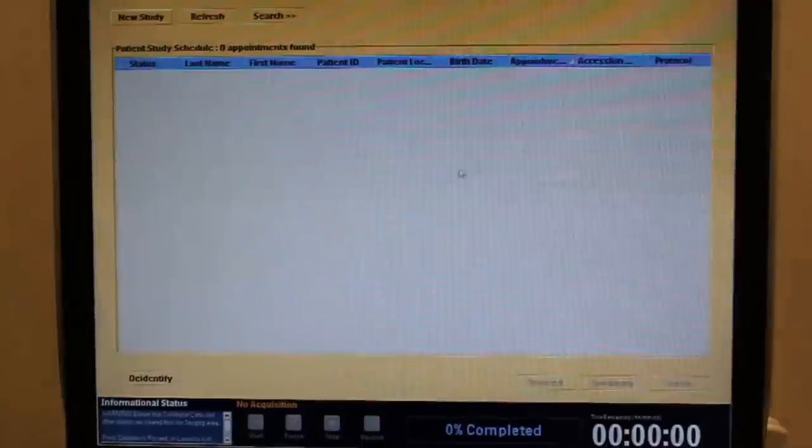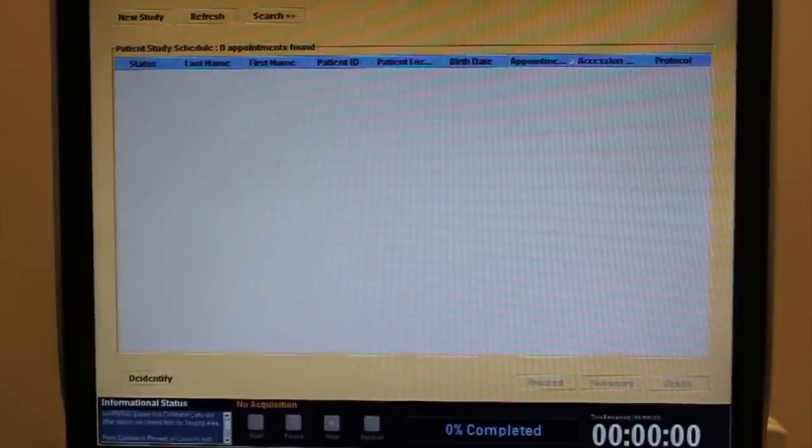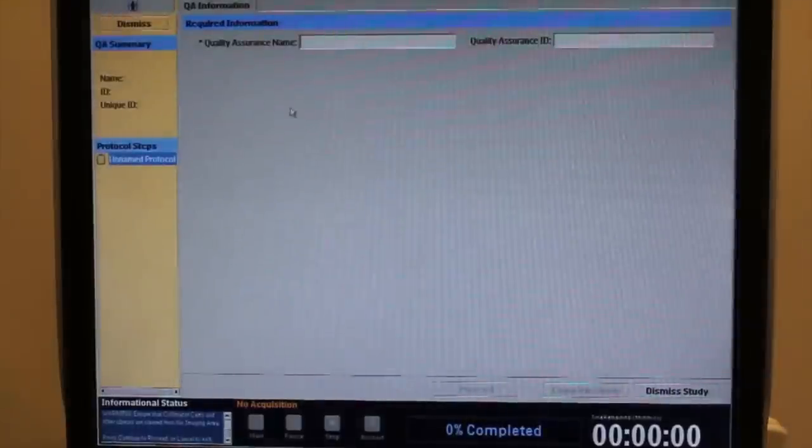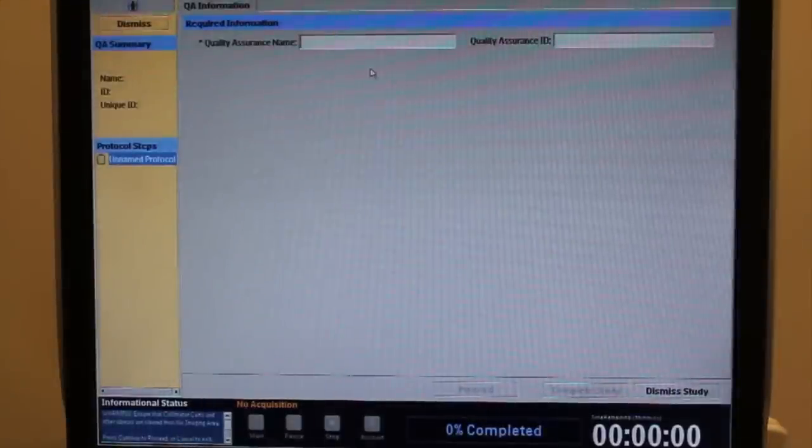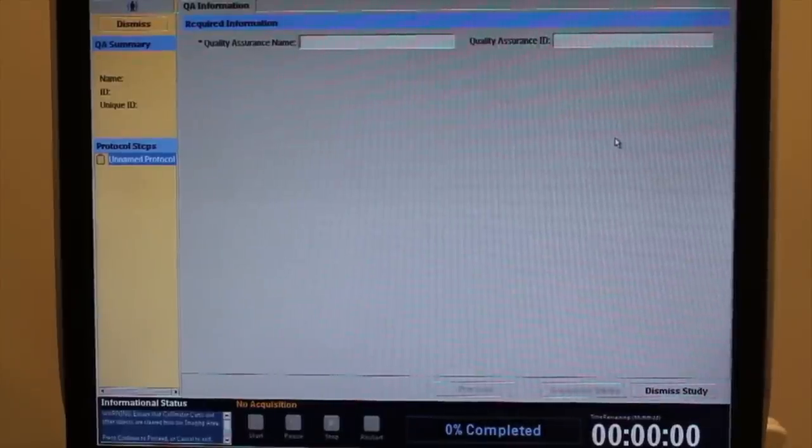Extrinsic Daily Quality Control. Begin by entering QA calibration menu from the main screen of the Jetstream Acquisition Program.